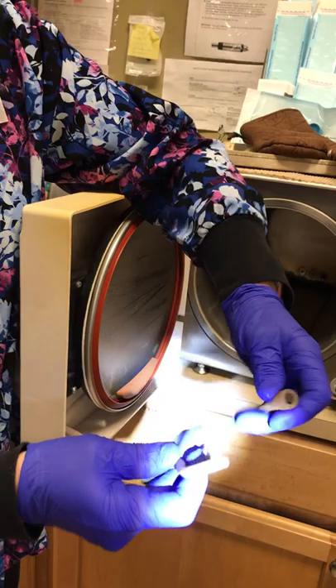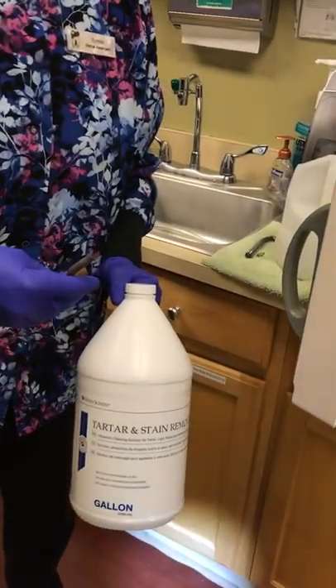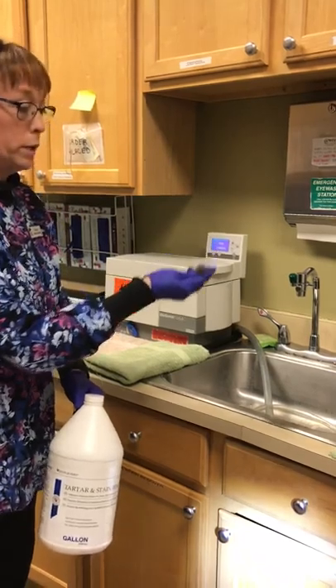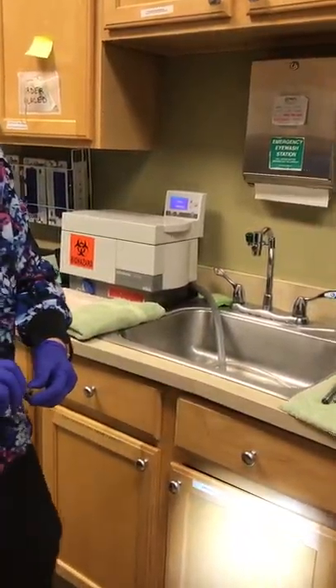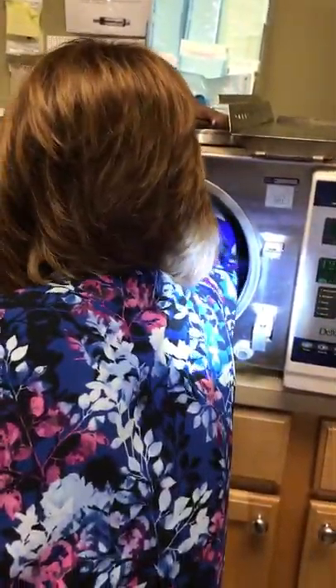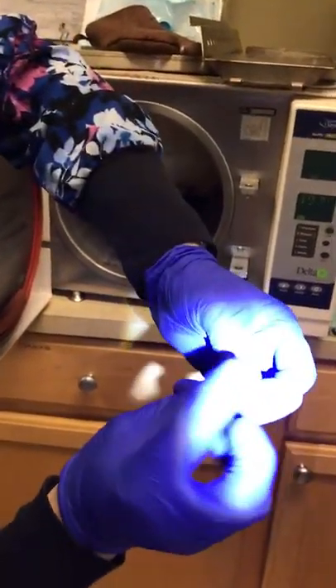This piece unscrews. I take it apart and use a tartar stain remover in a baggie, put it into the ultrasonic, run it for about five to eight minutes, take it out, rinse it really, really well, put it back together, before you put your innards back in — back into the chamber. Same thing with this: make sure there's no debris and it's all free.